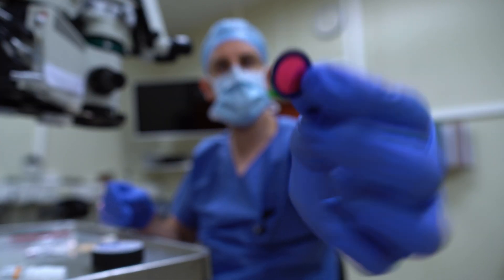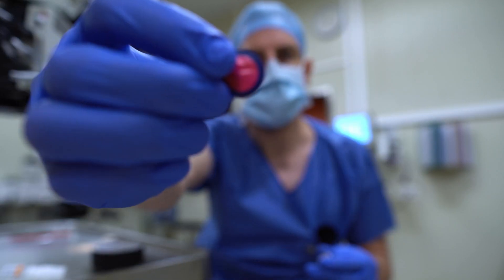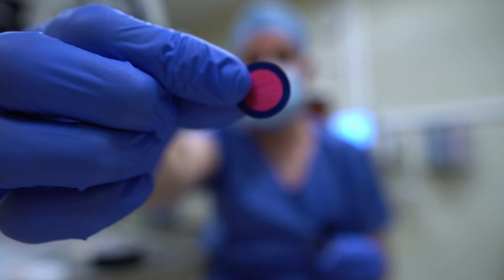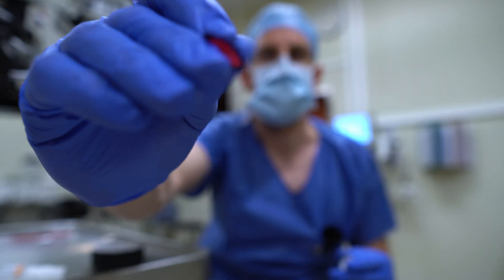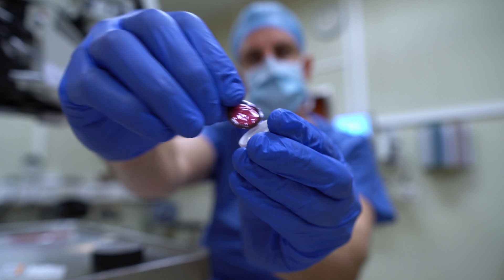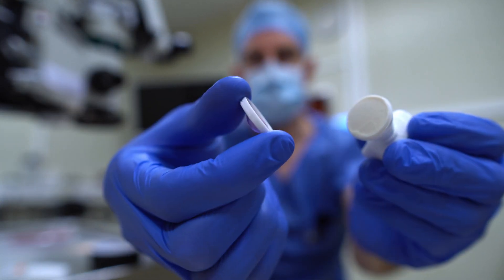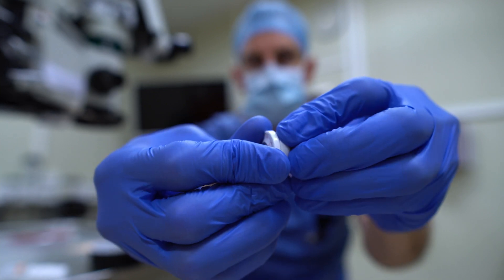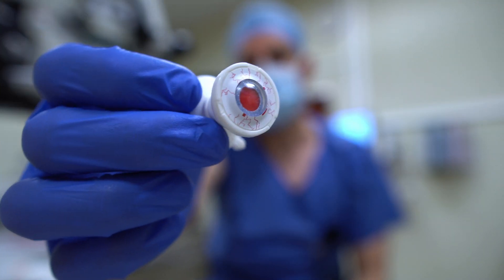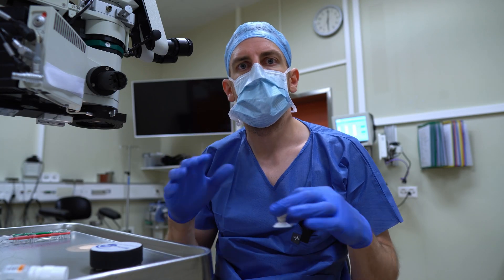Now we're going to take one of these films and then take the cornea. There are two sides to the capsule — the one where you can actually see the ring, and the other side where you see the ring through that red foil. You have to put this side up in here, then put this onto that and just clip it on. If you want to simulate a steeper lens, you can just turn this to increase the pressure on the capsule.